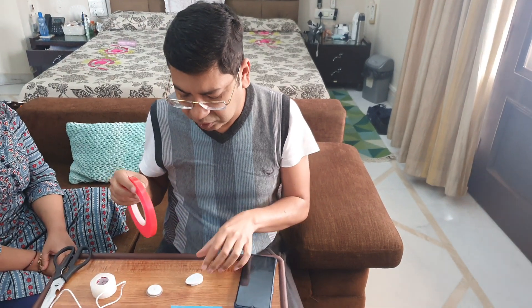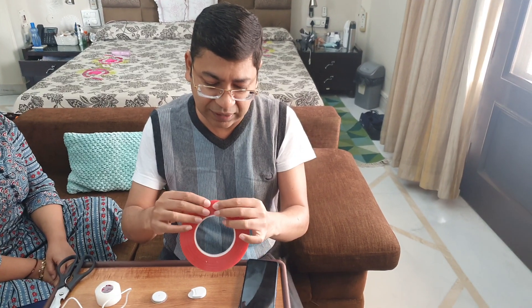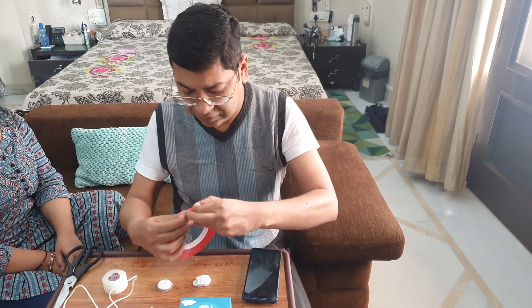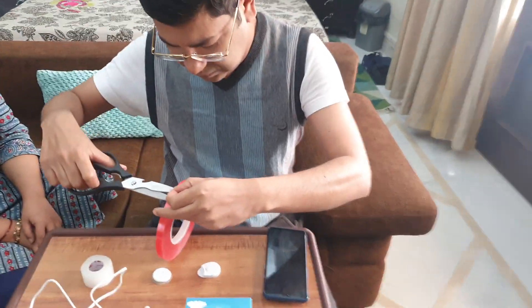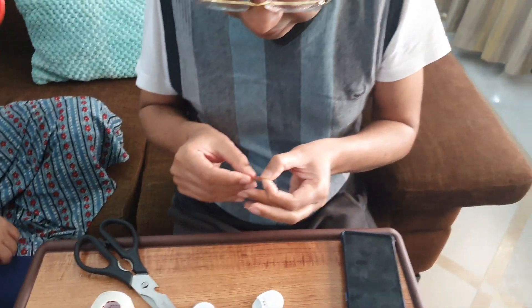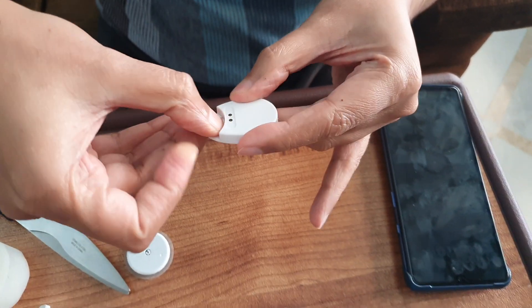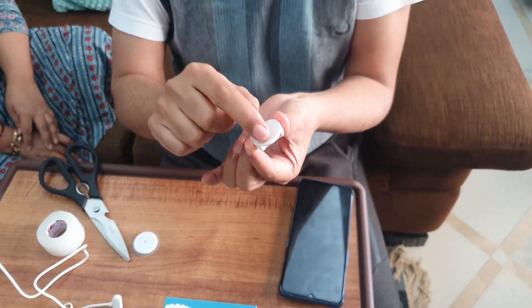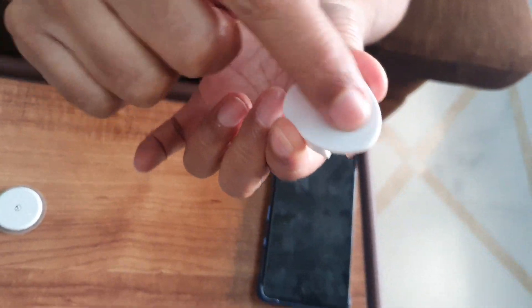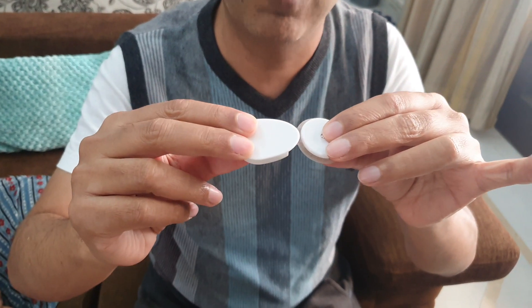First, cut a small piece of this tape — you don't need a very big piece. Stick it to the inside of the Bubble. This part is the NFC sensor antenna, and if it is not properly connected — if it is angled like this or like this — it will stop working.